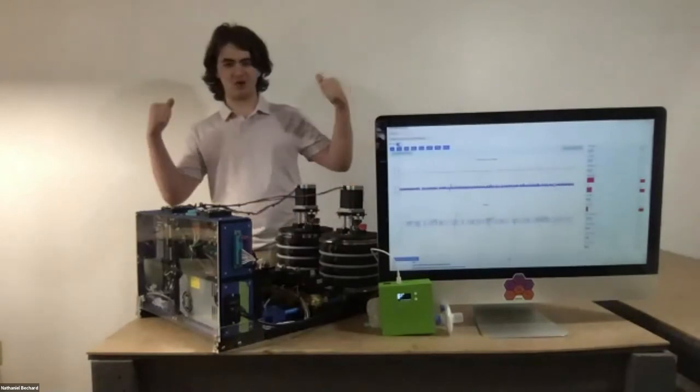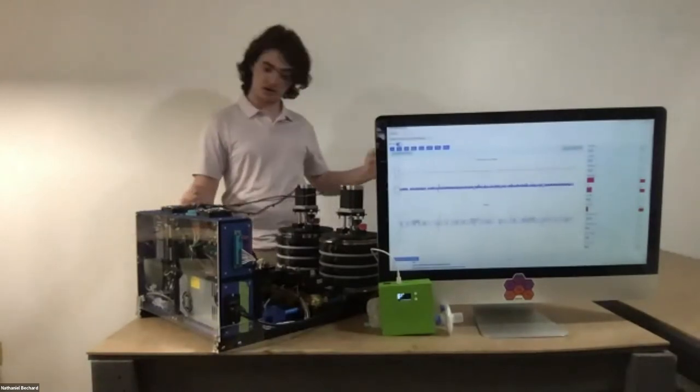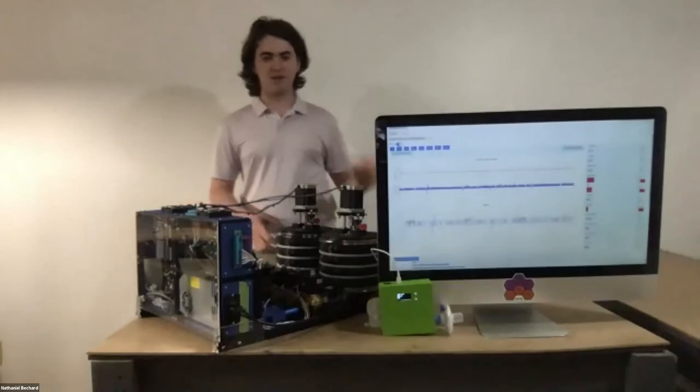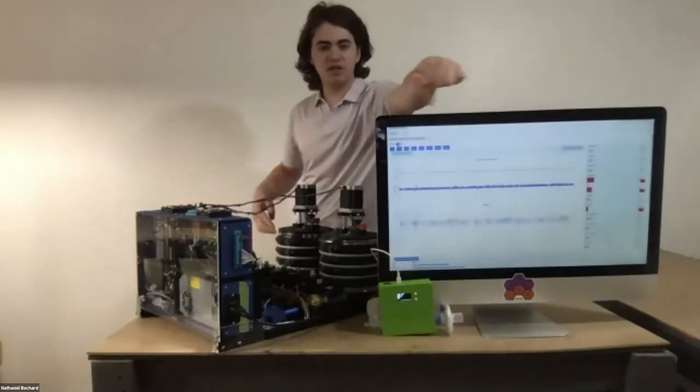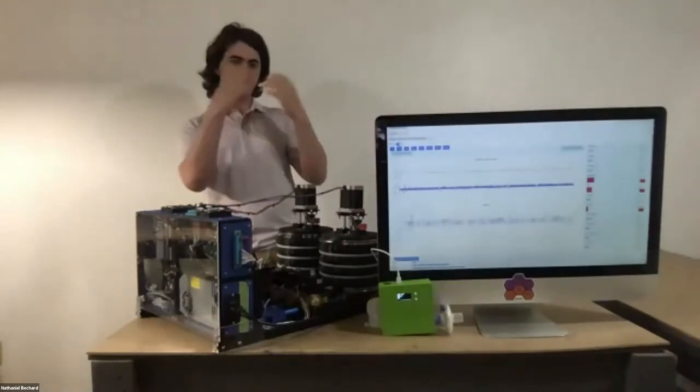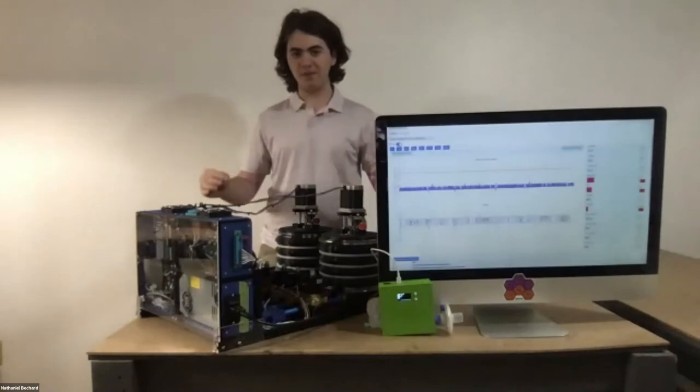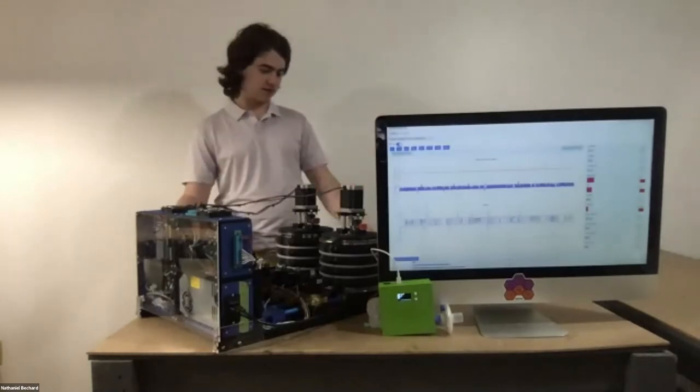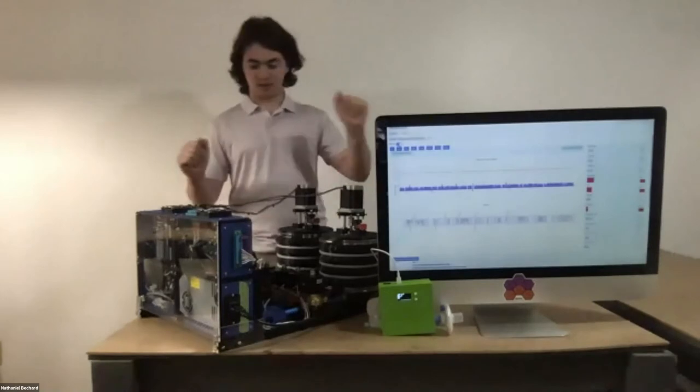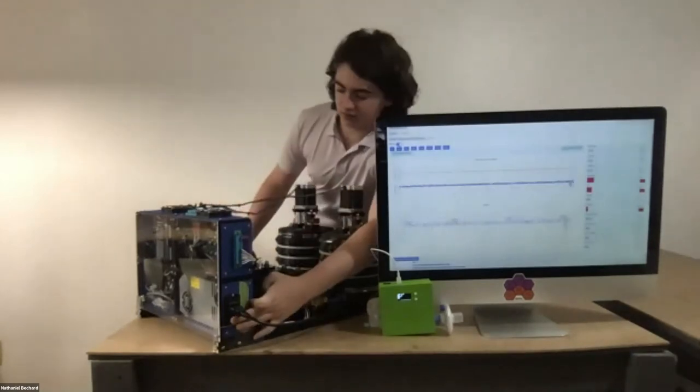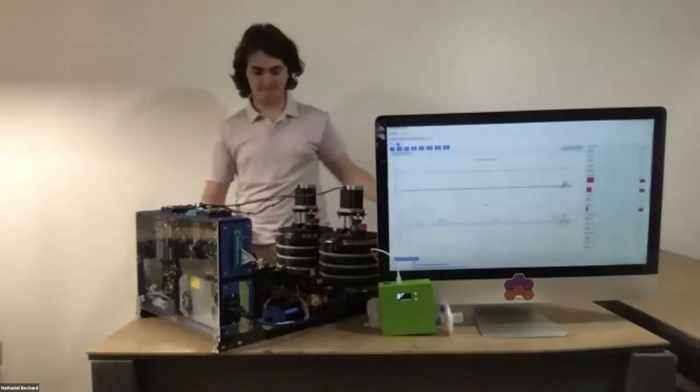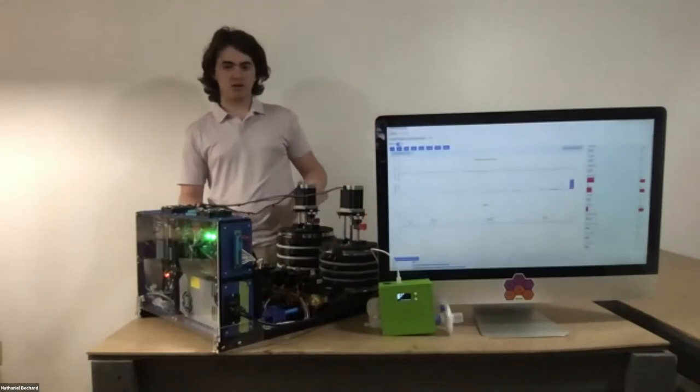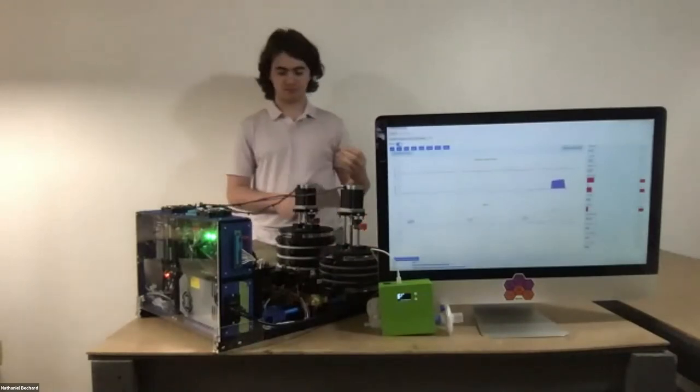So of course, I have this thing set up. I'm going to try and do a demo today. I have the screen set up on the VentMon. That should be the breath output. And I have the ventilator here, VentMon, everything set up. I'm just going to turn this thing on for a bit. Right. So you can start seeing the bellows pump.